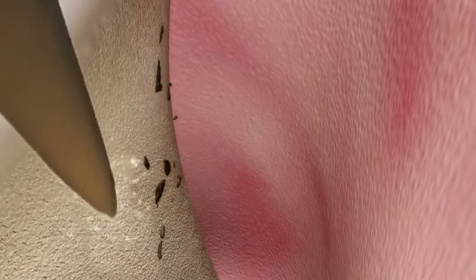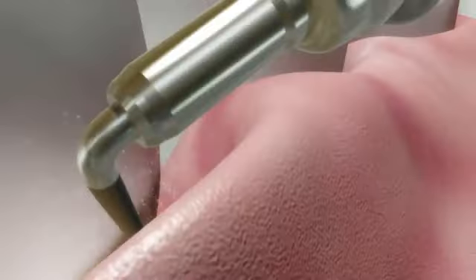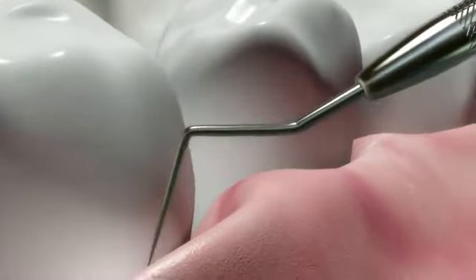Now we go back over the root surface very lightly with a piezo scaler, using a side-to-side motion from the top to the bottom of the pocket just to confirm all the calculus is removed. Thorough removal of the calculus is crucial to good healing results. Next, we use an endodontic explorer to confirm tactilely that all the calculus has been removed.